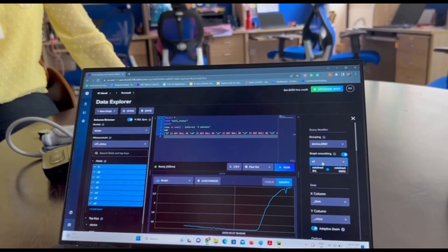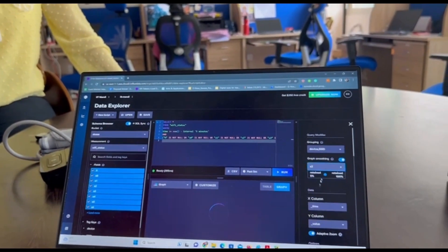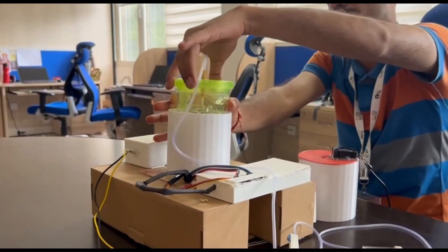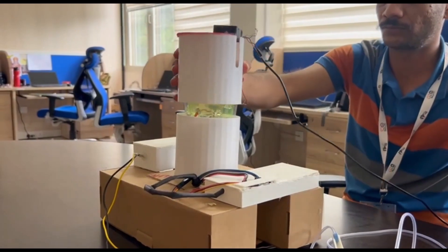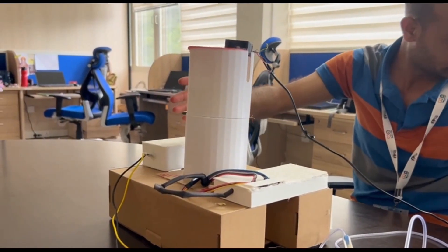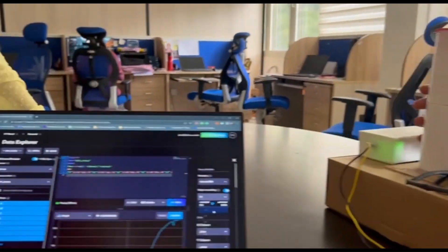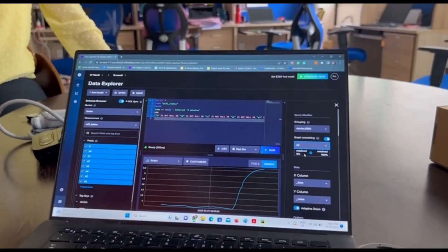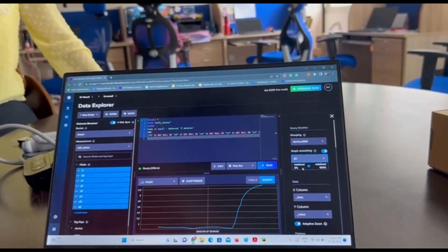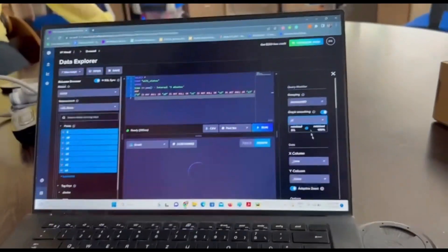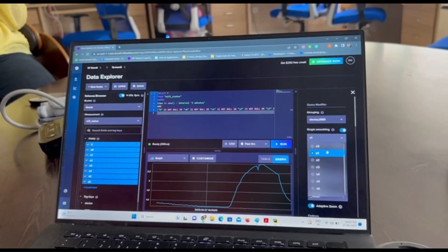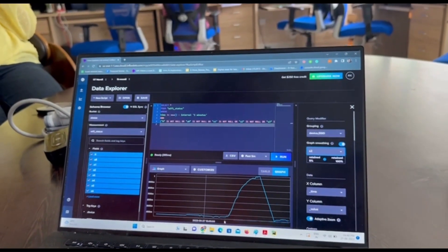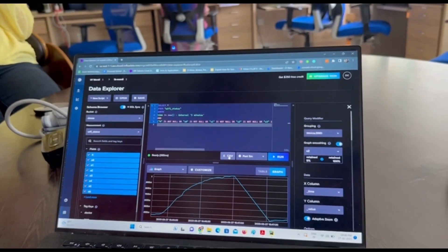At this point, since the sensors have reacted to the maximum extent with the breath sample, we open the cap of the soda sipper cup and mount it with the fan setup to expel the breath sample out of our device and get it ready for the next sample. We can observe parallelly that the curve has started descending now and we will again wait for it to reach the bottom with a stable voltage. Now, as it has obtained a stable point, we will capture the characteristic curve from here and download the corresponding sensor voltage data as a CSV file.